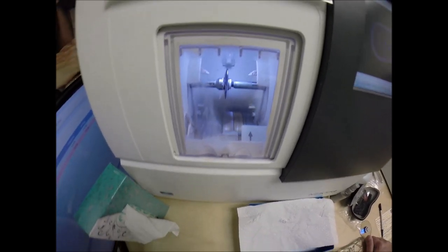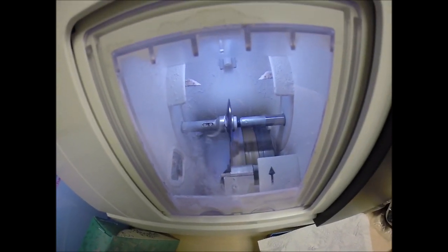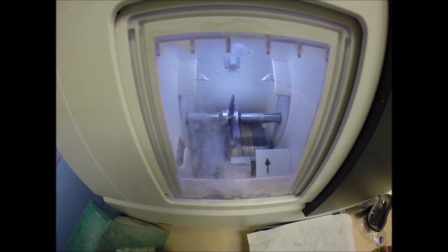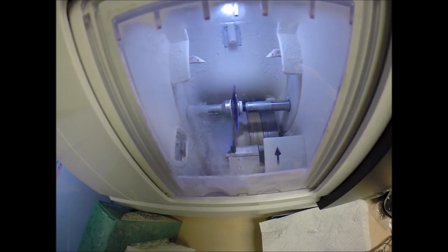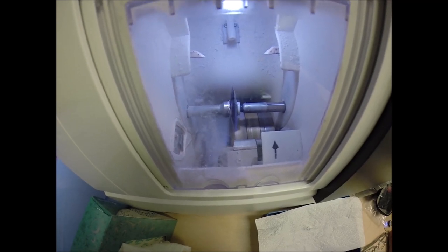The old carpenter saying — measure twice, cut once. It's measuring the thickness of the lens to know exactly where to place the bevel for the best cosmetic look possible. The cutting wheel is starting up and the lens is going to drop down. The water you see in the background is there to catch the optical sawdust that's all over the machine.